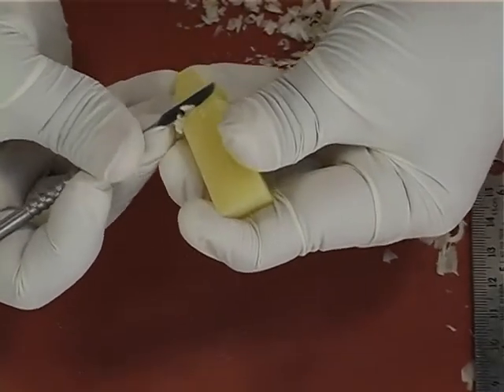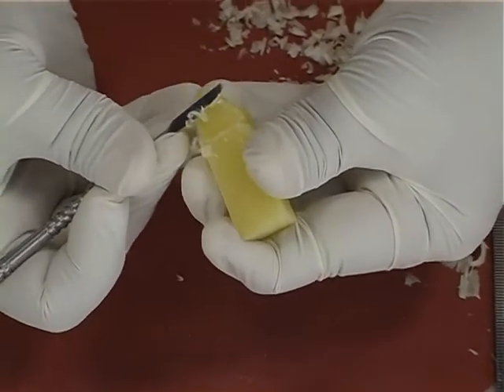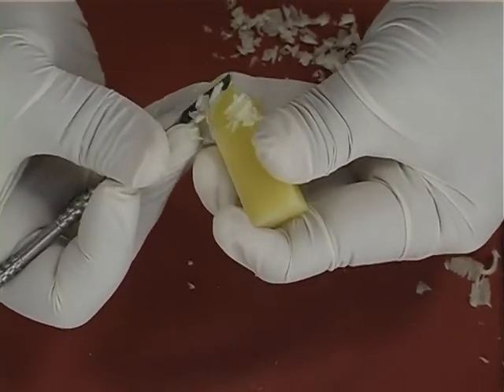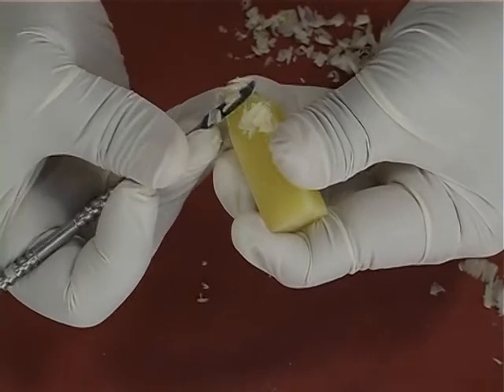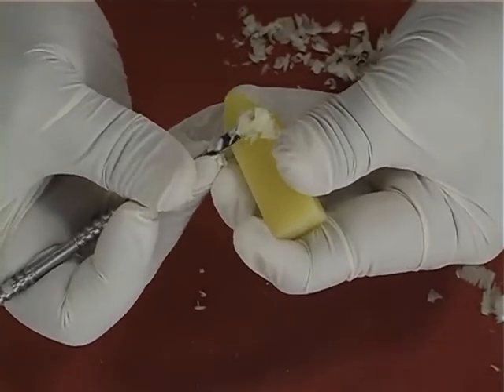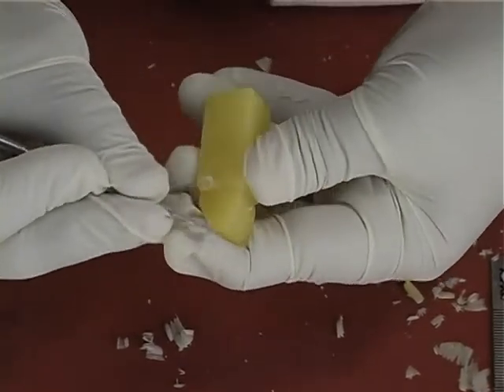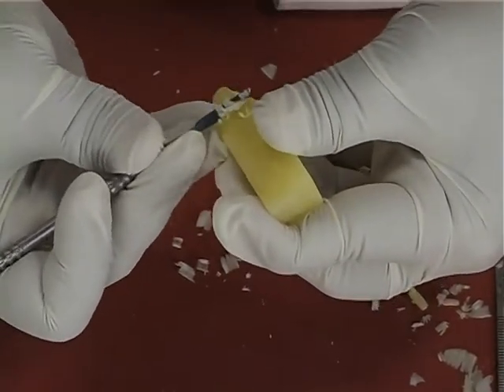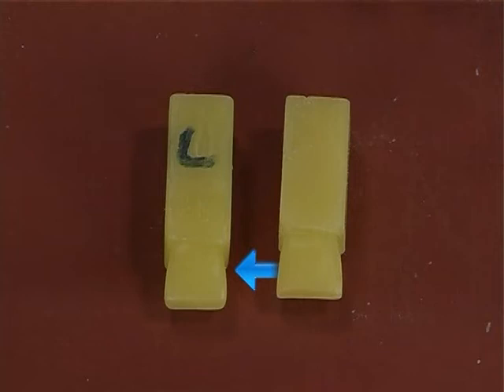Next, the distal surface is carved by slowly removing the wax starting from the disto-labial edge and then moving towards the disto-palatal edge. The carving of the proximal aspect is otherwise called the proximal reduction, and this should follow the mesial and the distal outlines drawn on the palatal aspects. This is the labial view showing the carved proximal surfaces.